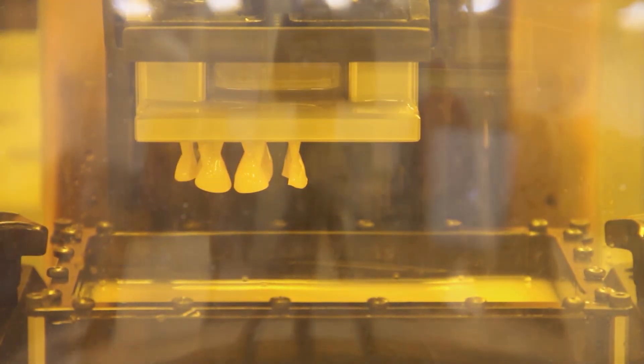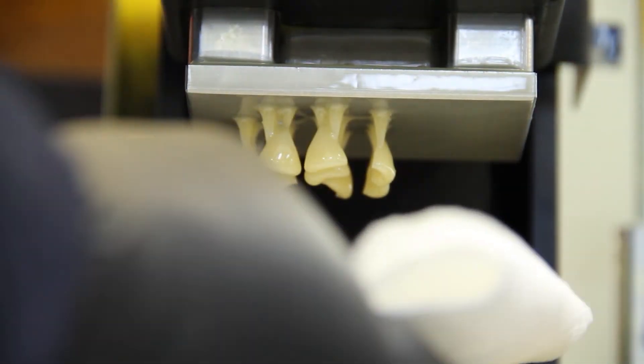The Envisiontec Micro DDP is used to print the newly designed tooth with Envisiontec's e-Dent material.